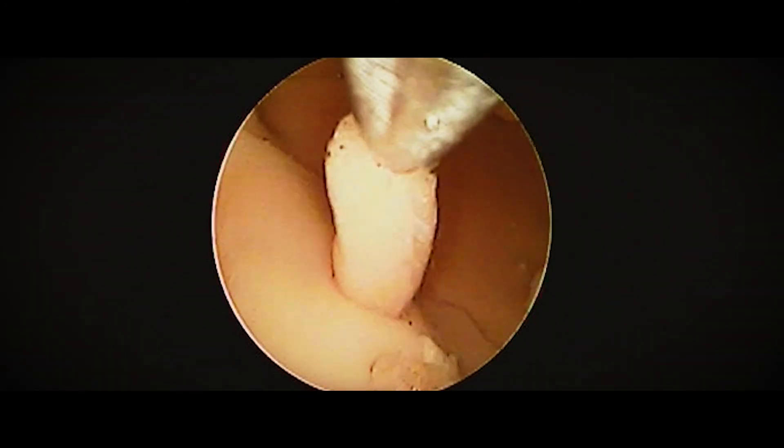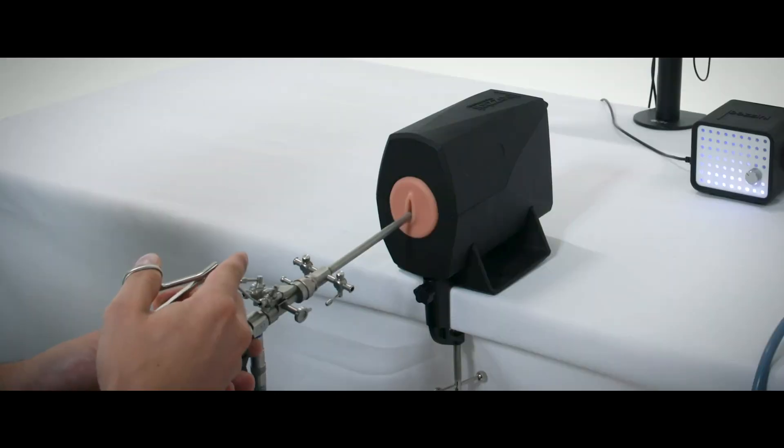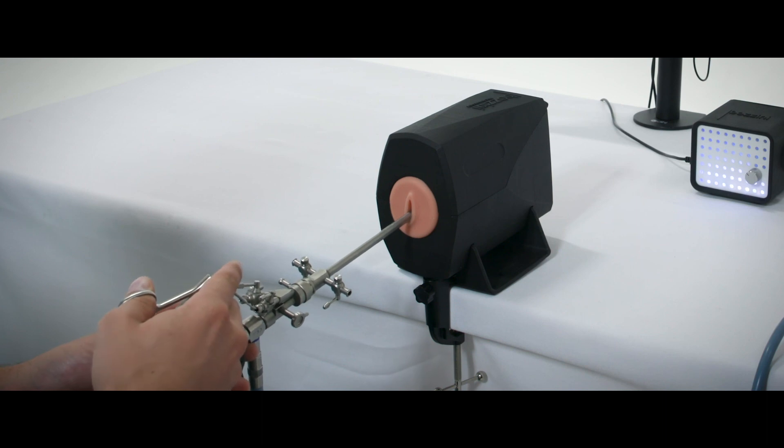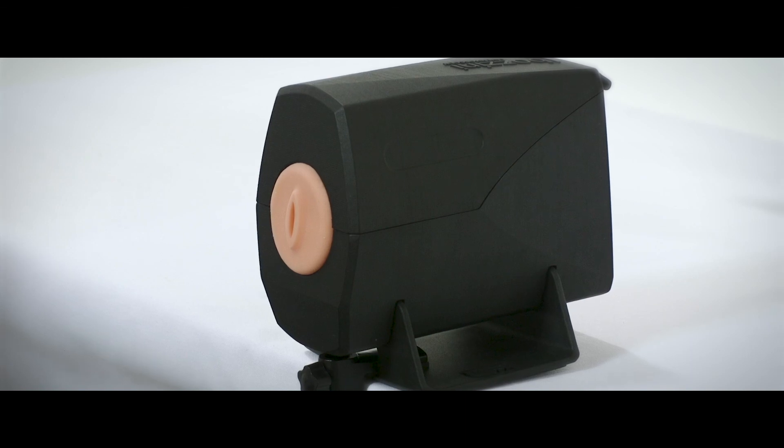The pathologies within these models are made from Innivis' proprietary water-based substrate and as such react perfectly with a full suite of hysteroscopic instruments, making them the perfect solution for demonstration and training on a full suite of medical devices.